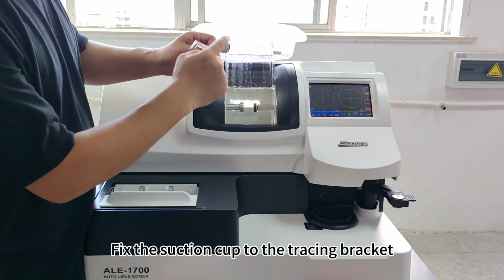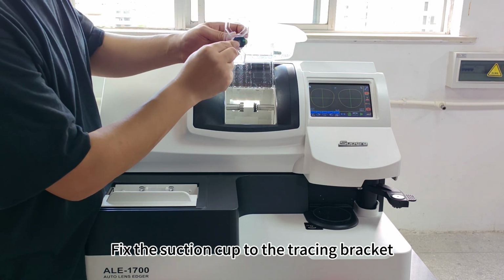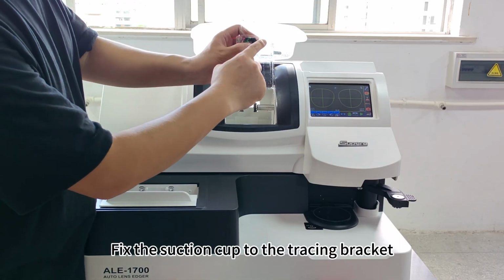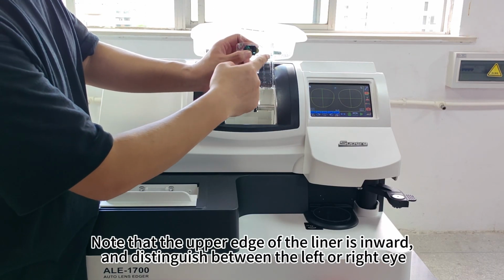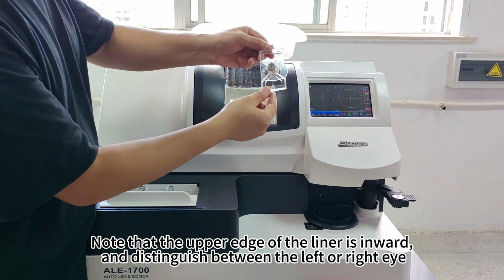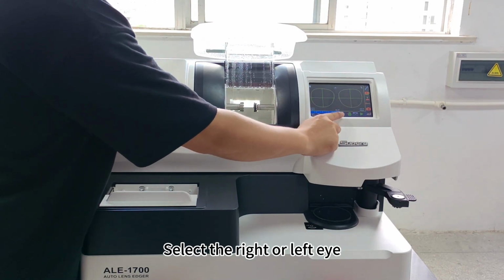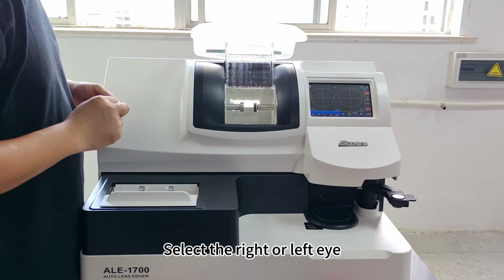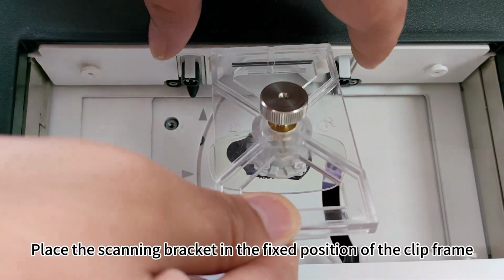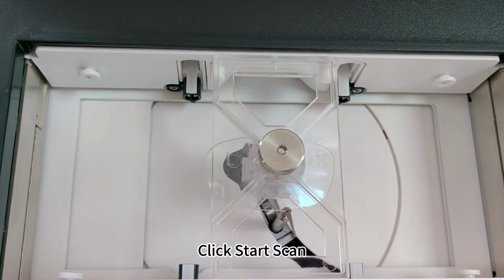Fix the suction cup to the tracing bracket. Note that the upper edge of the liner is inward, and distinguish between the left or right eye. Select the right or left eye. Place the scanning bracket in the fixed position of the clip frame. Click Start Scan.